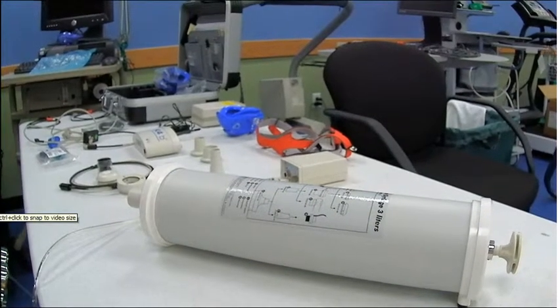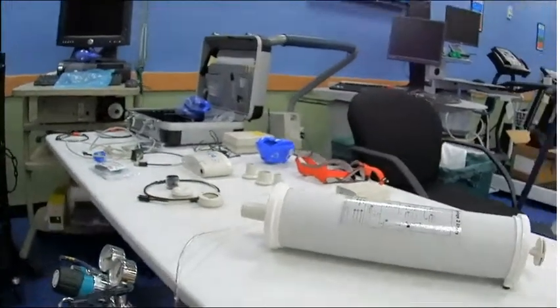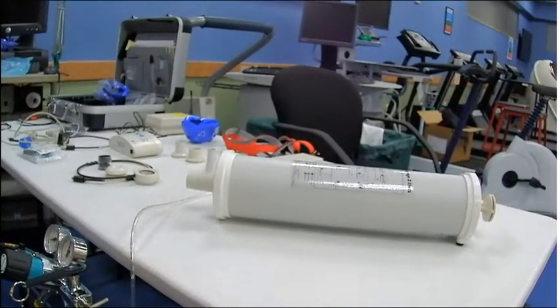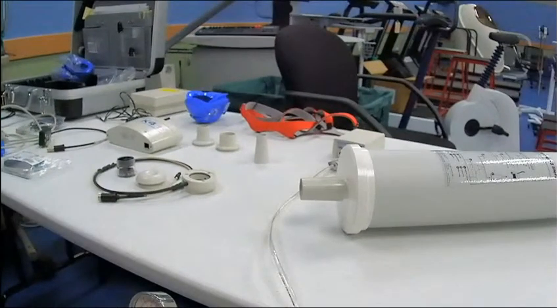Hi everyone, I'm Tyler and this is a K4B2 tutorial. I'm going to be showing you an overview of the parts here. I'm recording this on our Bosch cameras, which don't have sound capability, so I'm recording over them with presenter software in order to do a voiceover. Let's get started.